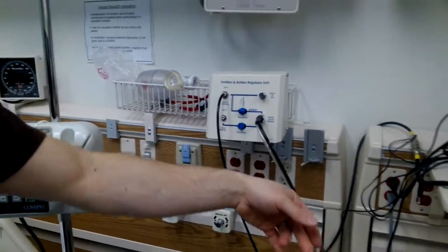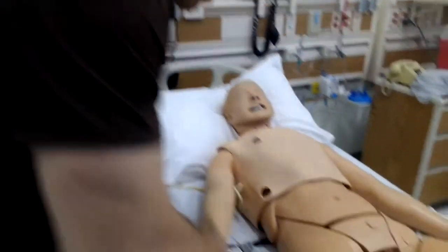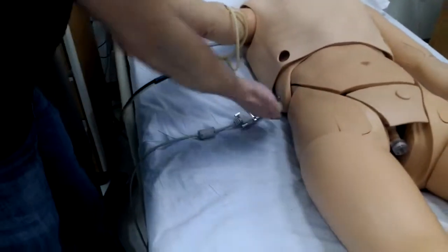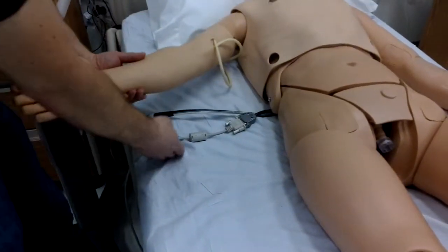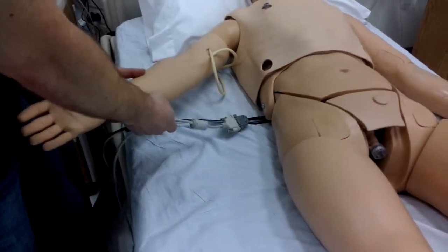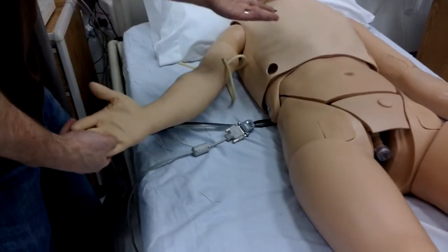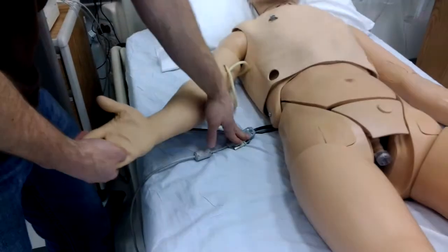Now the air is going through this tube, over to SimMan, into here, into the mannequin itself. The other connection at the mannequin we see here is the data cable. It's not wireless like the 3G, so it receives its information and its control capabilities through this data cable.